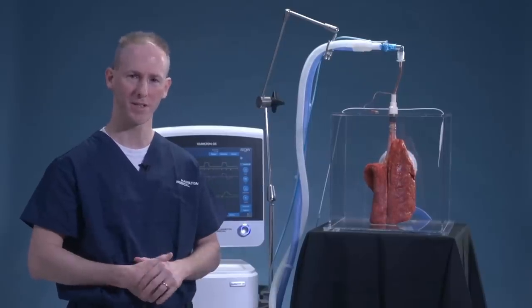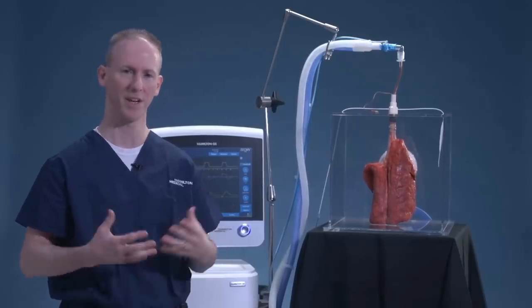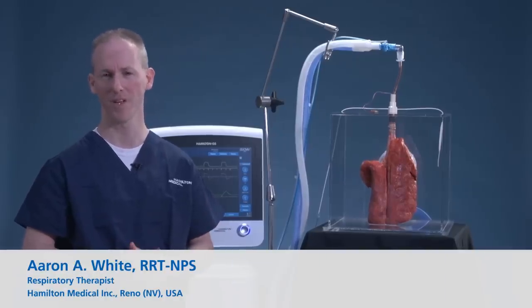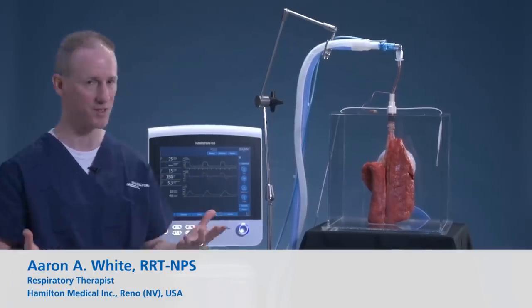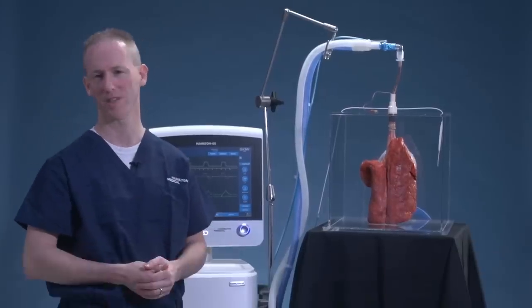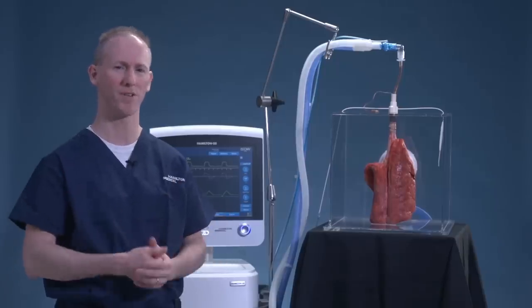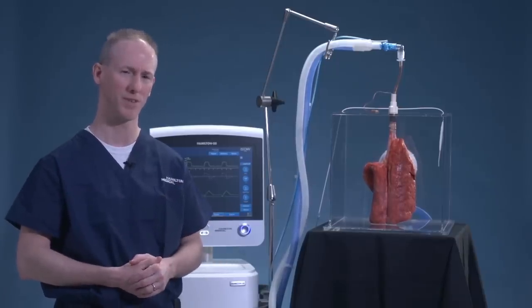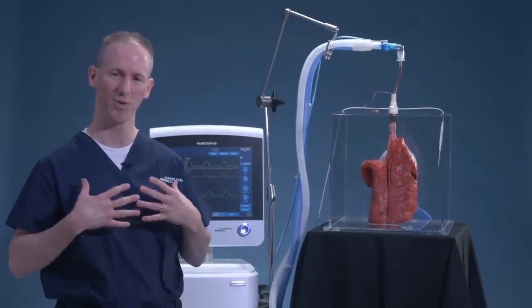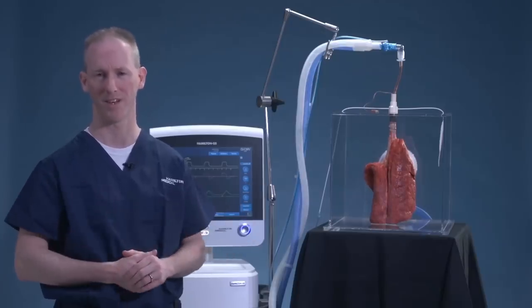On the ventilator, as we ventilate our patients, one of the things we're most challenged by is setting PEEP in the correct way. We're also limited by the fact that airway pressure doesn't always tell us where the pressures lie. Part of the pressure delivered to the patient's lungs is spent to inflate the lungs, and the other part is what it takes to move the thoracic cage out of the way as it accepts that volume inside the lungs.